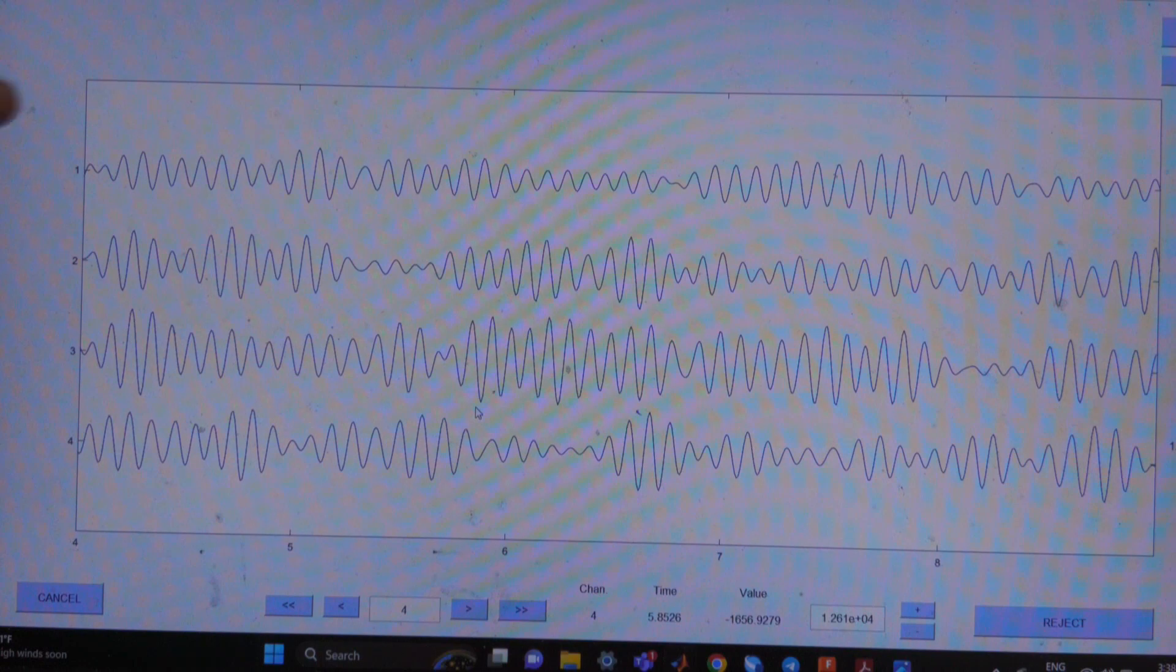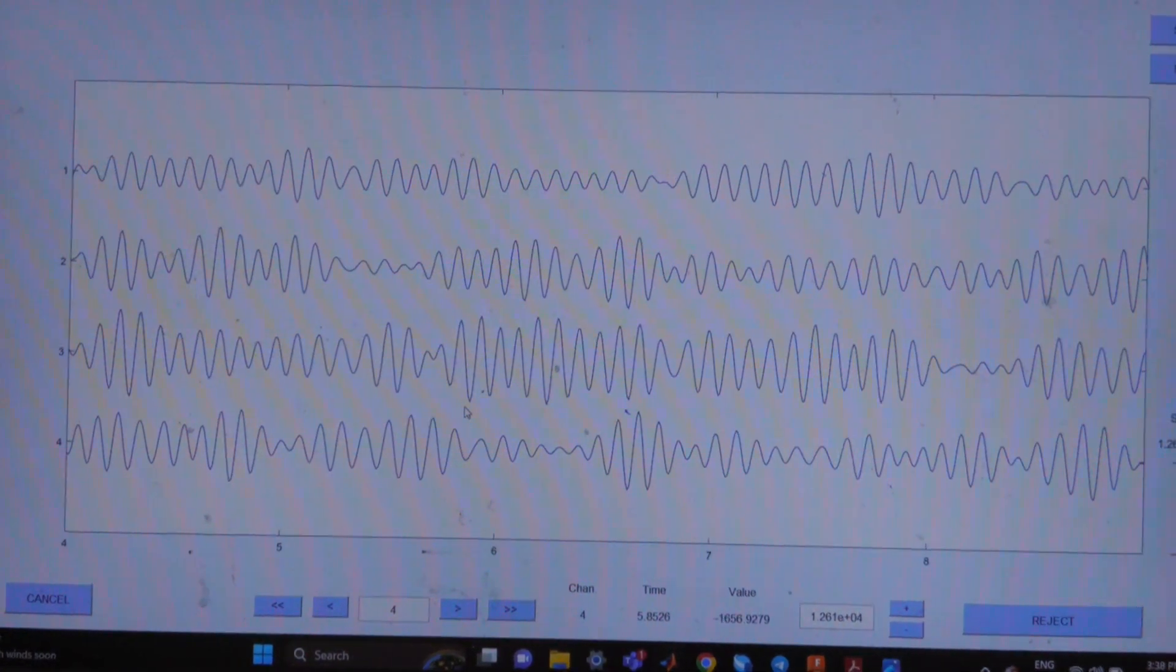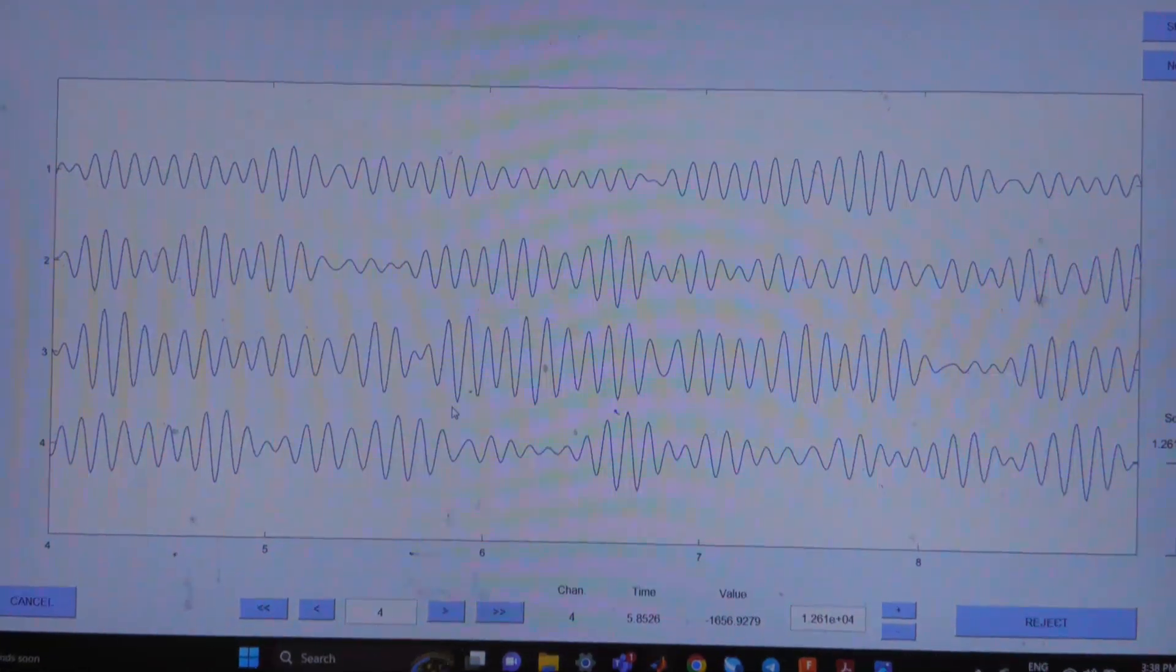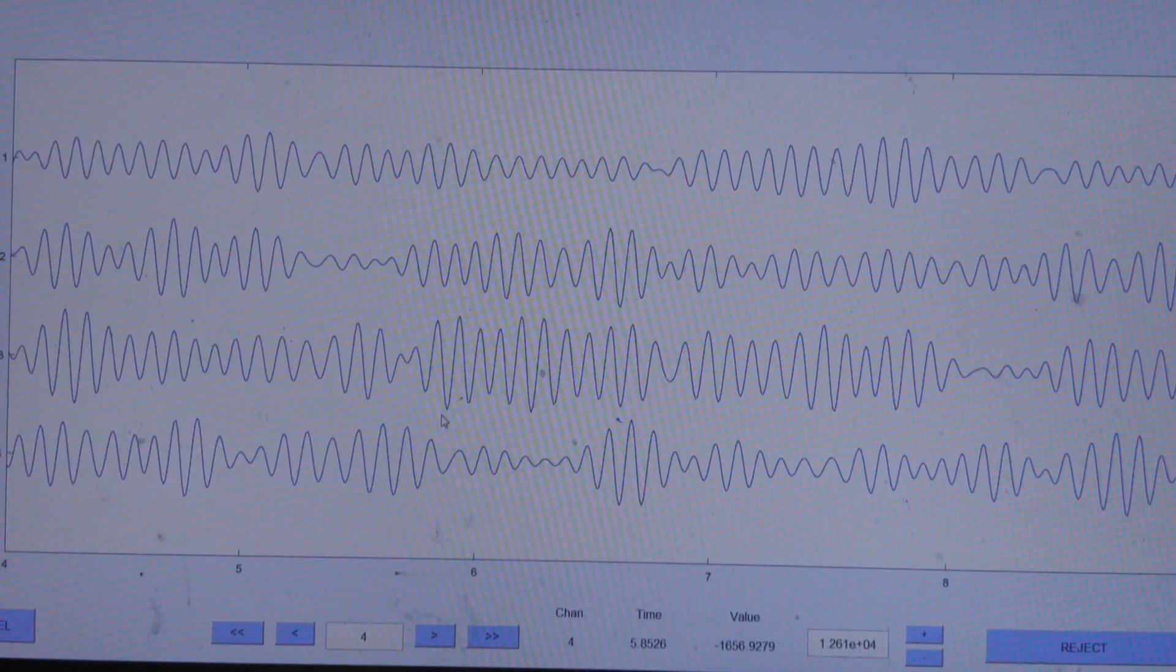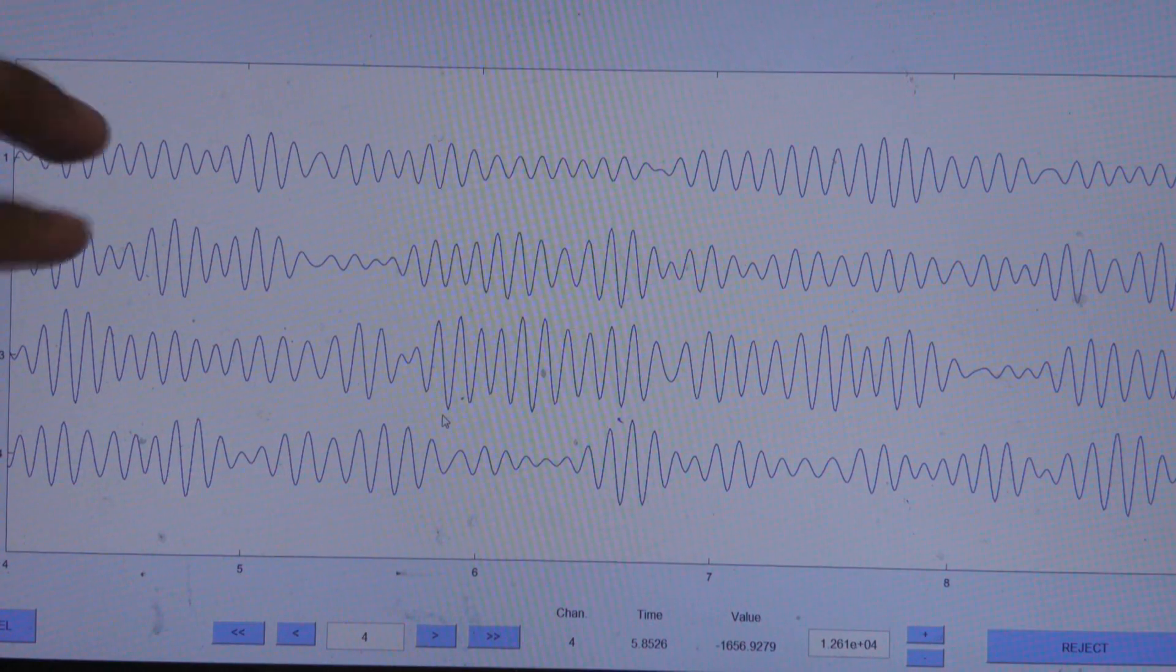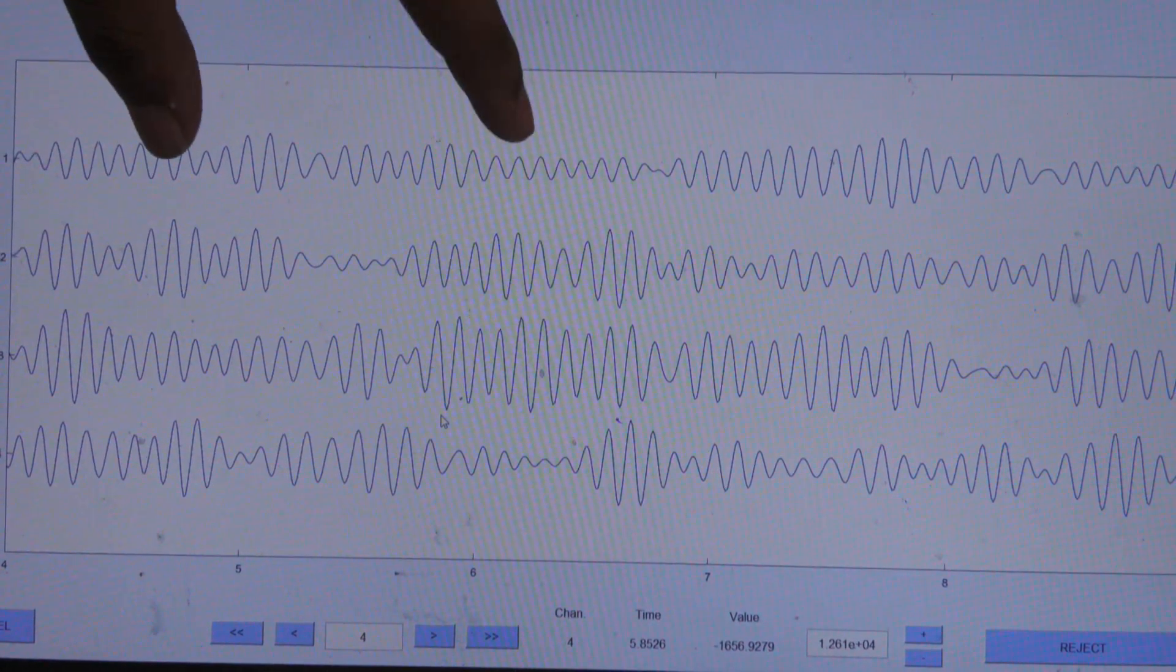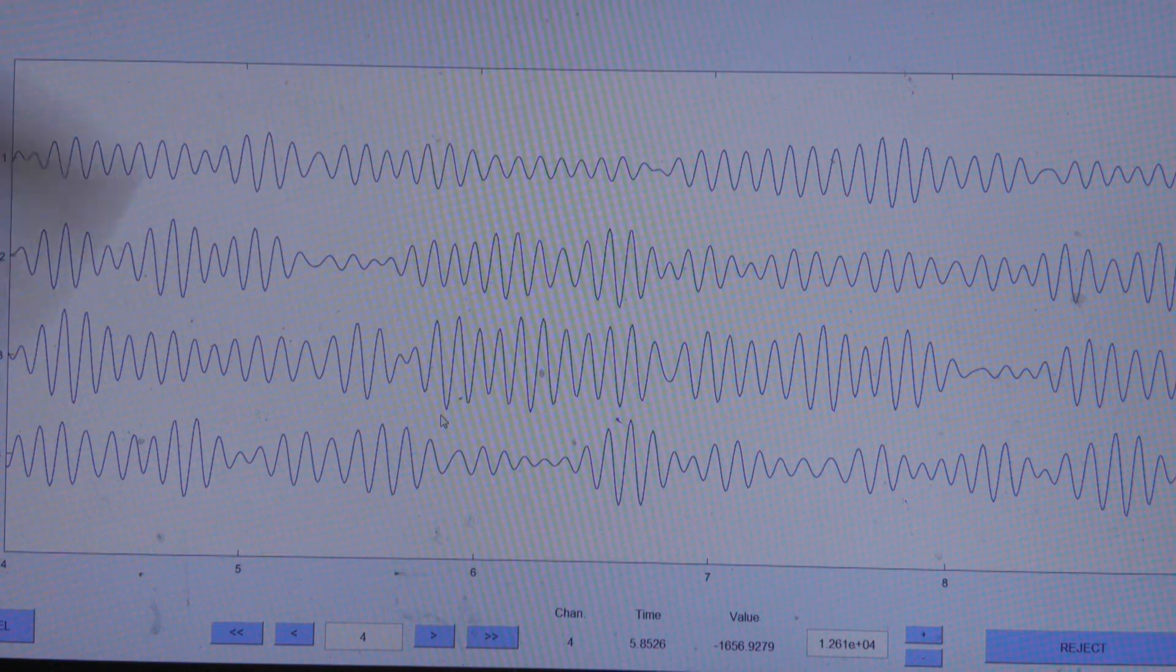The first two electrodes are connected to the back of the brain where the visual stimuli is observed. So we are filtering the raw data to the 10 Hz band pass filter and then we can observe the strobe region and we observe a flat region where no activity is observed.